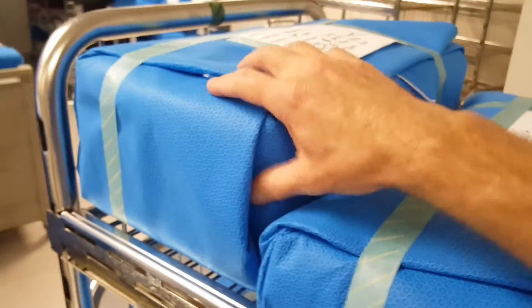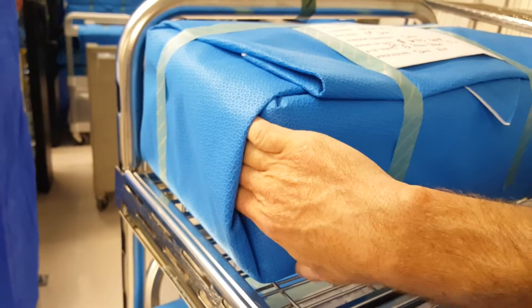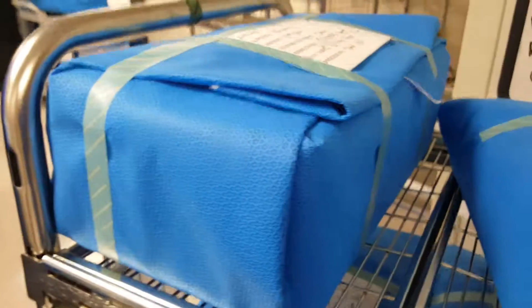See this — this is my wrap. You cannot get your hands in there, that's it. Fingers are dead, you can't get in there. That's as far as you can go. Tight.